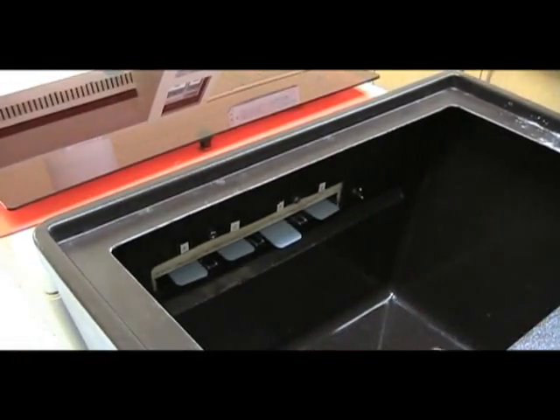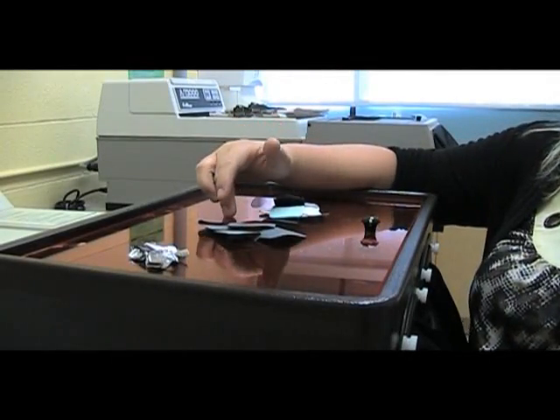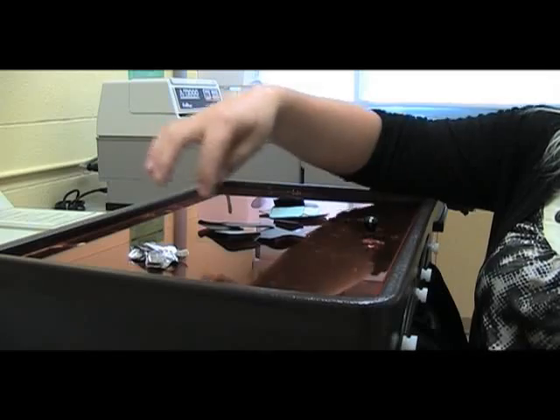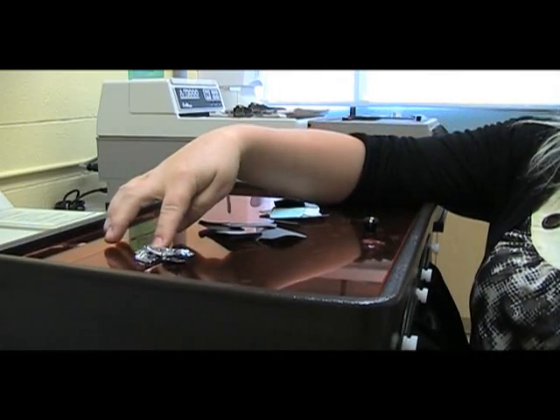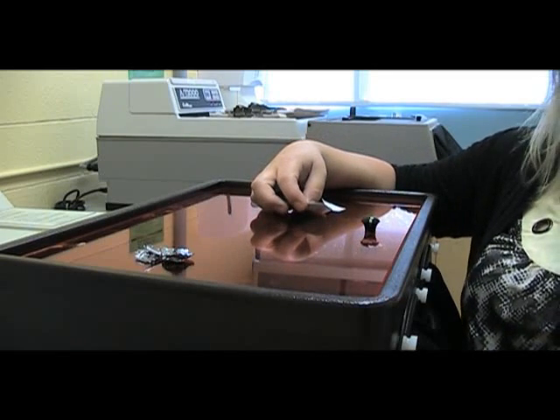Then you can pull your hands out. With your garbage, after putting your film through the processor, you want to separate it into the lead foil, the cardboard, and the outer packaging. The lead foil gets put into a container for recycling, whereas the cardboard and the outer packaging gets thrown into the garbage.